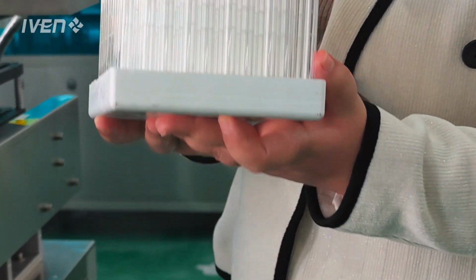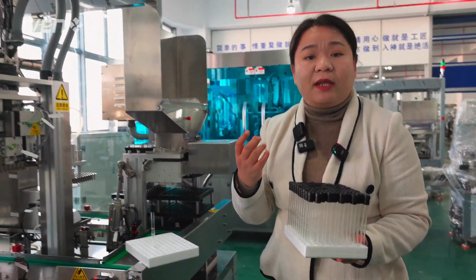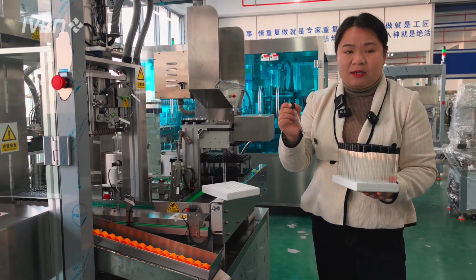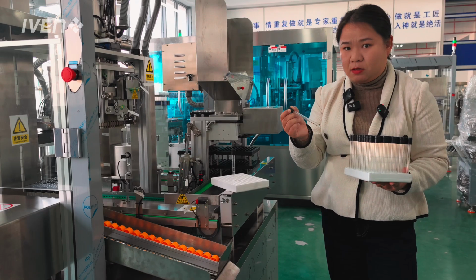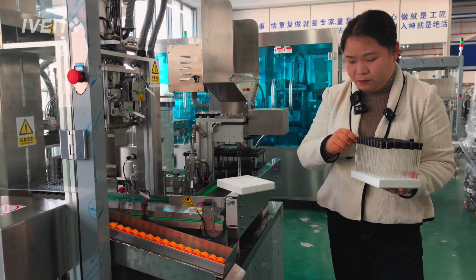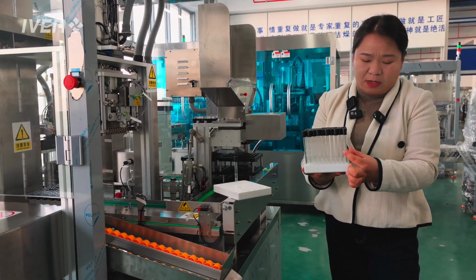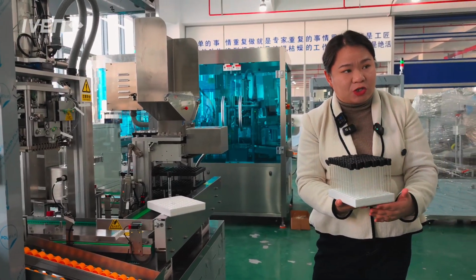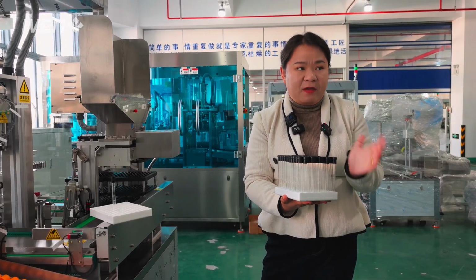Besides this, we have other single machines for labeling. And because today it's a sedimentation tube, we don't need gel, and we don't need plastic cap and rubber combined. So we just focus on this one. It's simpler. Once we have the tray like this, with finished tubes and labels, it will be transferred into the shrink package for further packaging and labeling on the top or the side, and then packed in cartons as finished products.